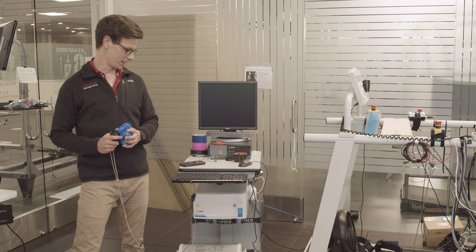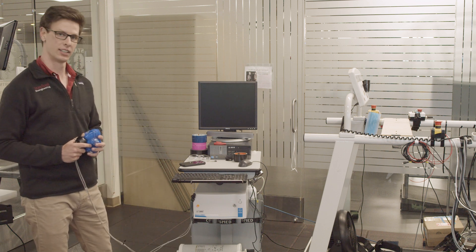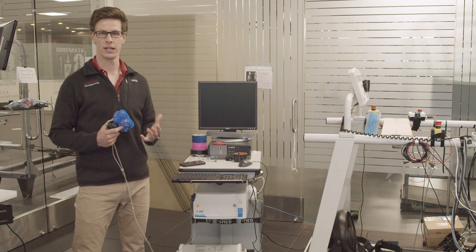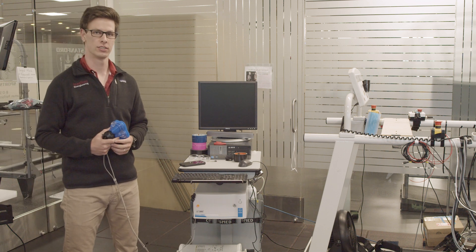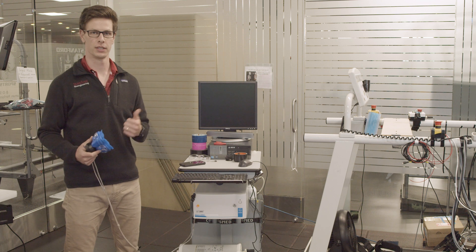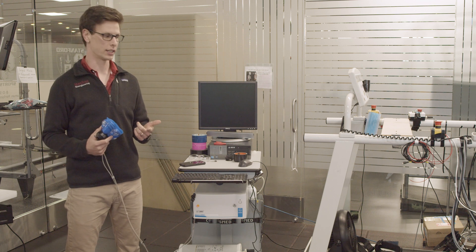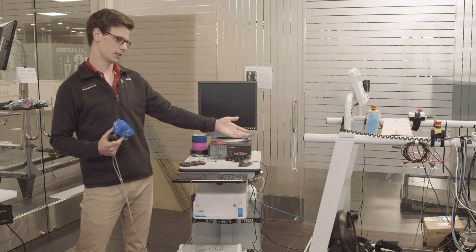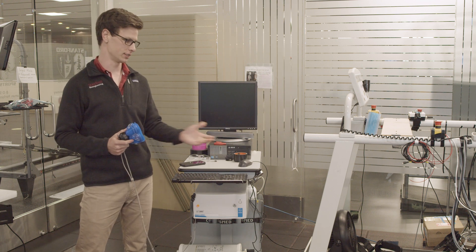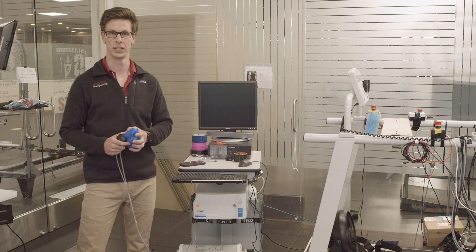Here we have our gas exchange analyzer, which we use to understand the metabolic energy used for different activities — for somebody walking or running, or even using an assistive device like these exoskeletons that we have over here.